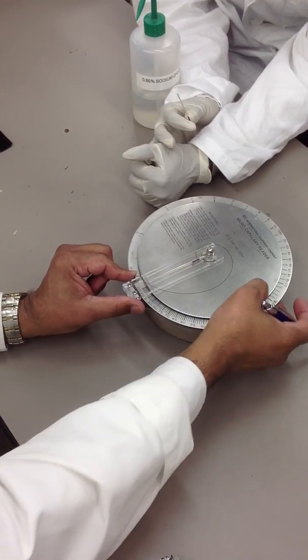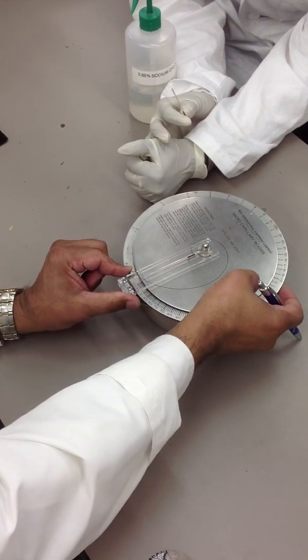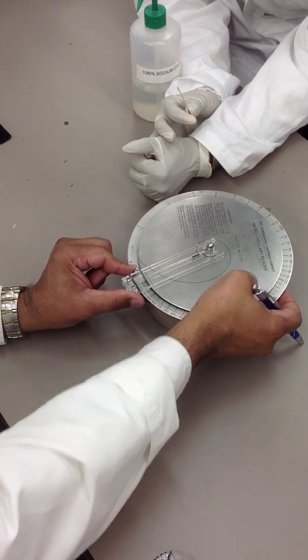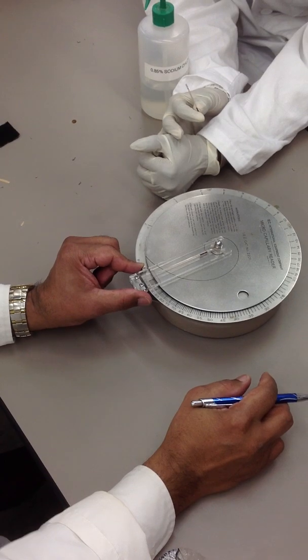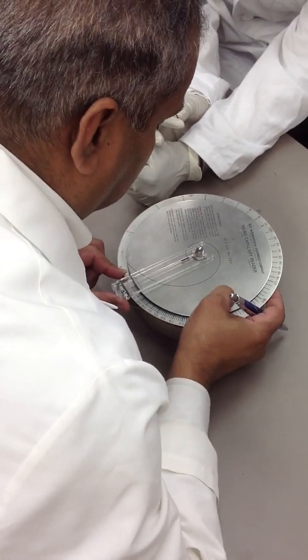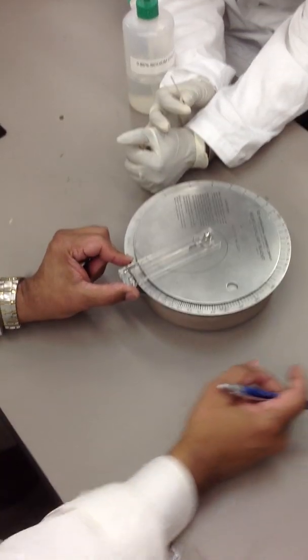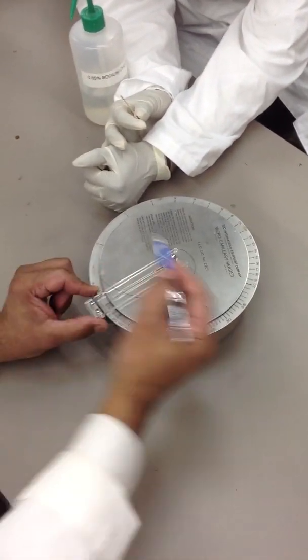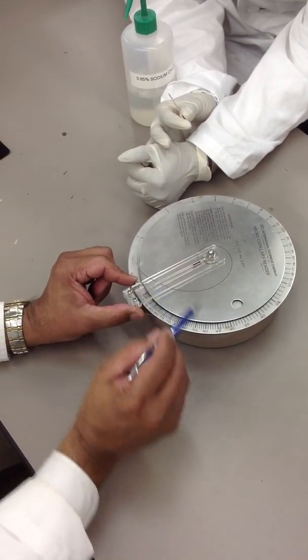So, the first thing to do is, once you have set this up, and this is at 100%, is to move this upper plate so the line crosses the air-plasma interface. That's the top. Right? So, you have to eyeball it and make sure it's exact on like that. So, that's the top of the column. So, the bottom of the column is on that line. The top of the column is set with the upper plate.